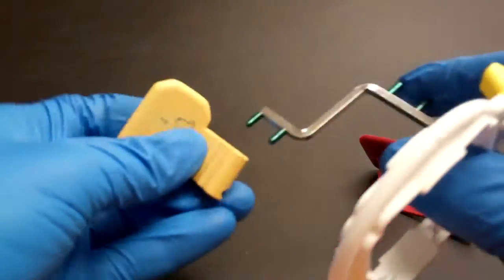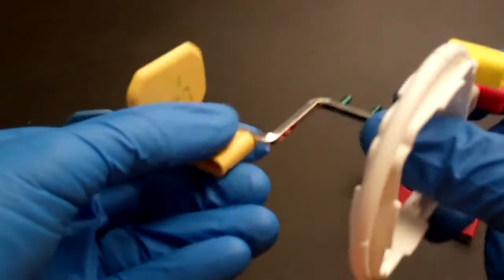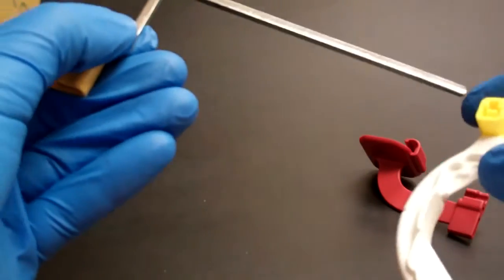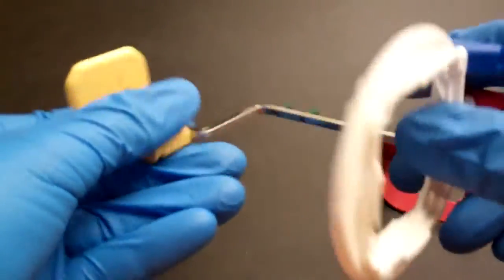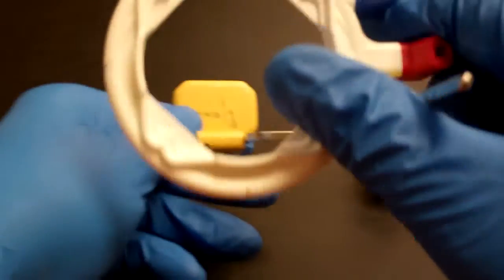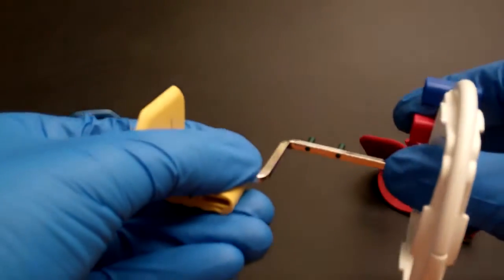And for the posterior, we would use those same pins but we're going to use a different guide on the ring to align for a posterior alignment and you can see there is the posterior.